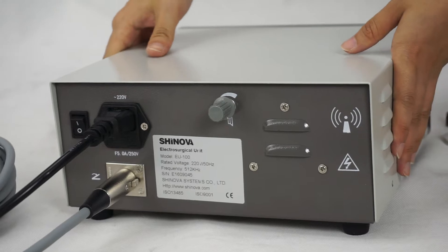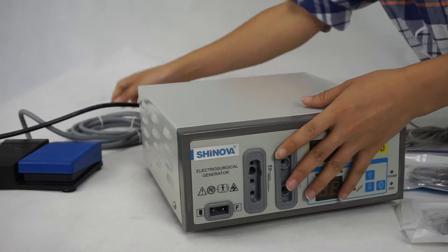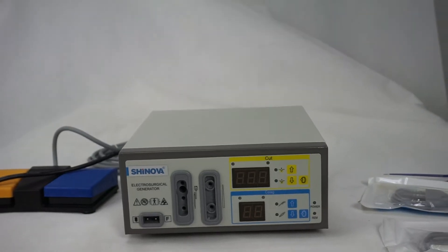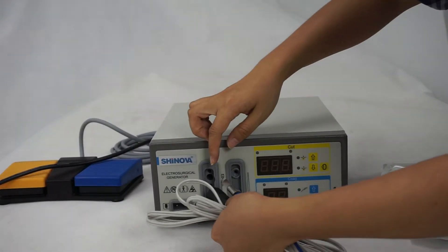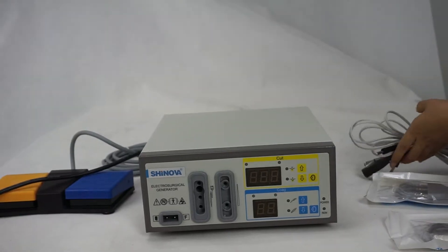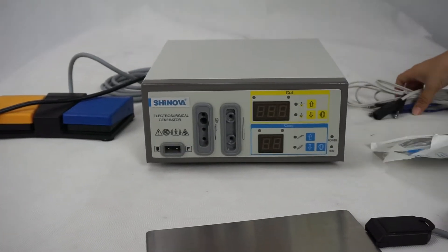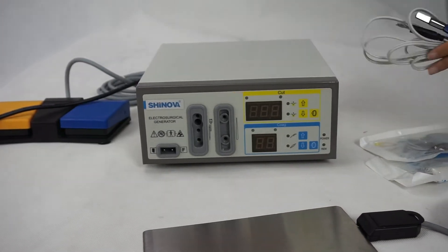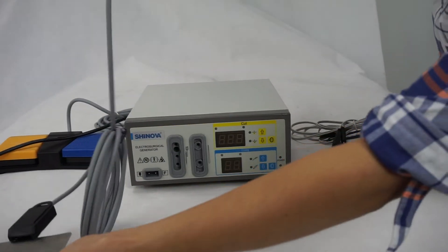Now move to the front panel. Let's show these accessories to connect the right position. The pencil connecting to this part. And the patient plate connecting to the socket.